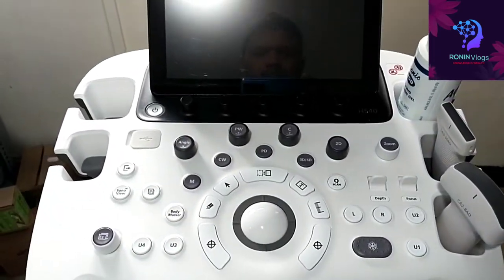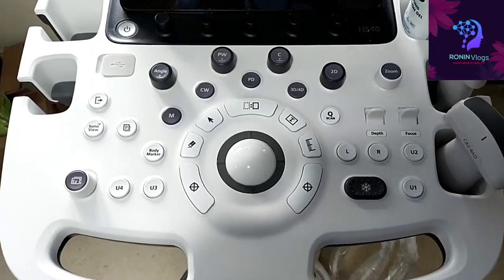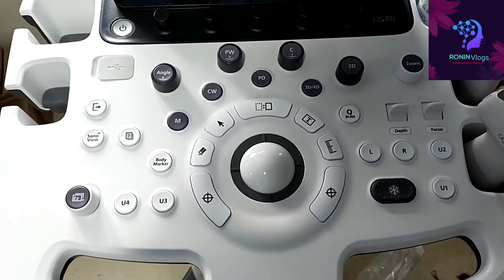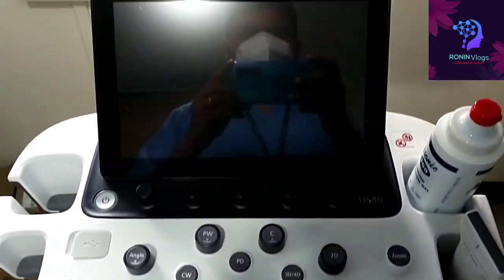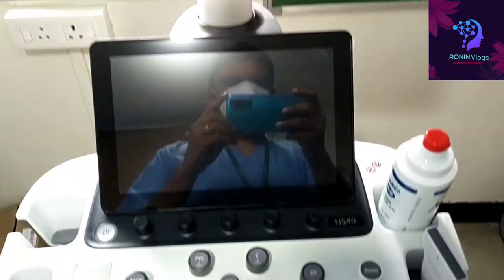This is the main console attached to the monitor. This is a small monitor, it is also a touchscreen. This is the big monitor, the main monitor.